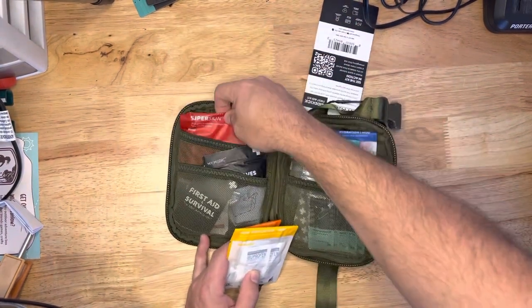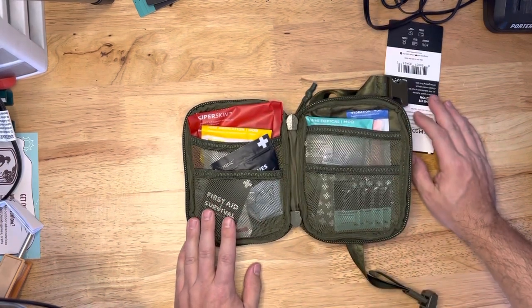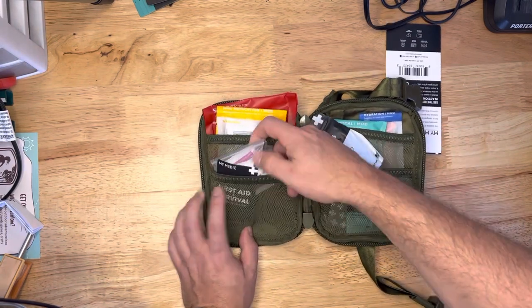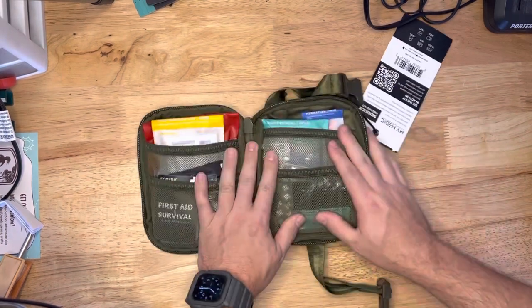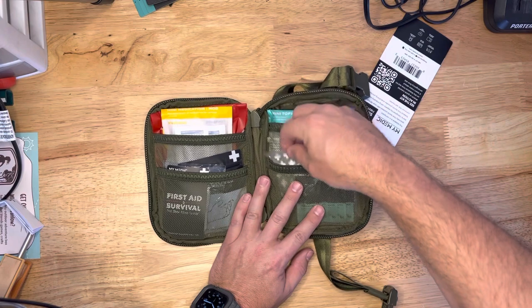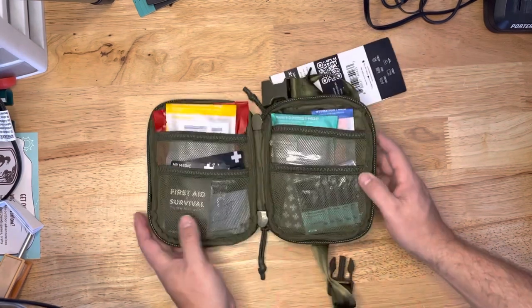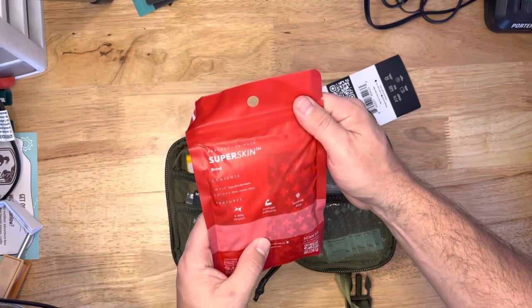I love the burn — I noticed a lack of burn gel in a lot of first aid kits. I had a friend get burned the other night. We were just hanging around the campfire and she burned her finger pretty bad, second degree burn, and I went out to my first aid kit and I had some burn gel in there — it was gone. That stuff works great to relieve pain. Nitrile gloves, a little first aid cheat sheet, and some antiseptic towelettes. Over here we've got some hydration, topical mod again, some wound cleaning supplies, more super skin band-aids, and triple antibiotic ointment. There are 30 band-aids in this one.